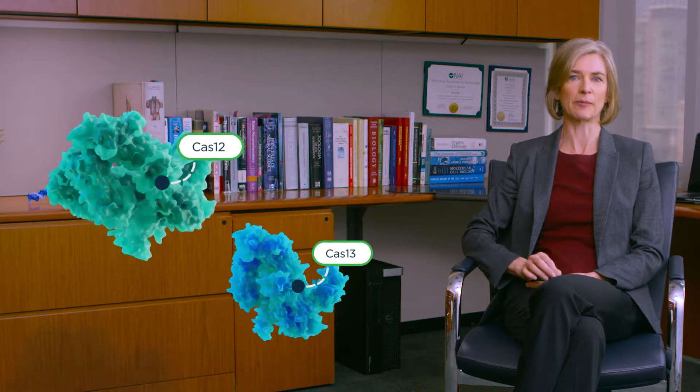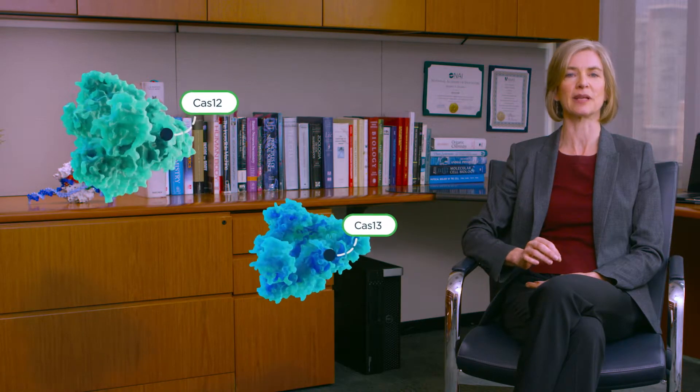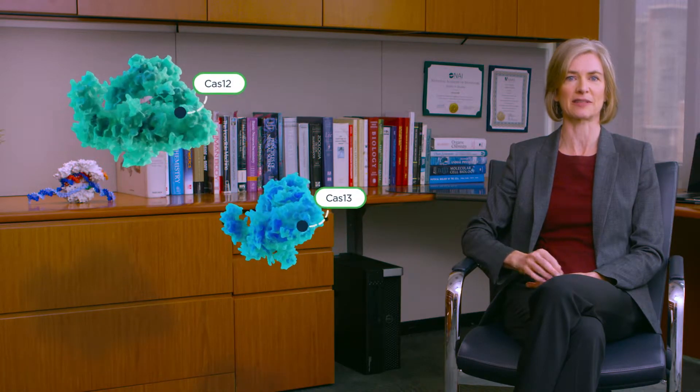At Mammoth Biosciences, we are harnessing the power of CRISPR-Cas for a new purpose: a programmable diagnostics platform that can detect virtually any genetic sequence of interest, including those of genomic mutations that cause human disease, bacteria, or viruses.